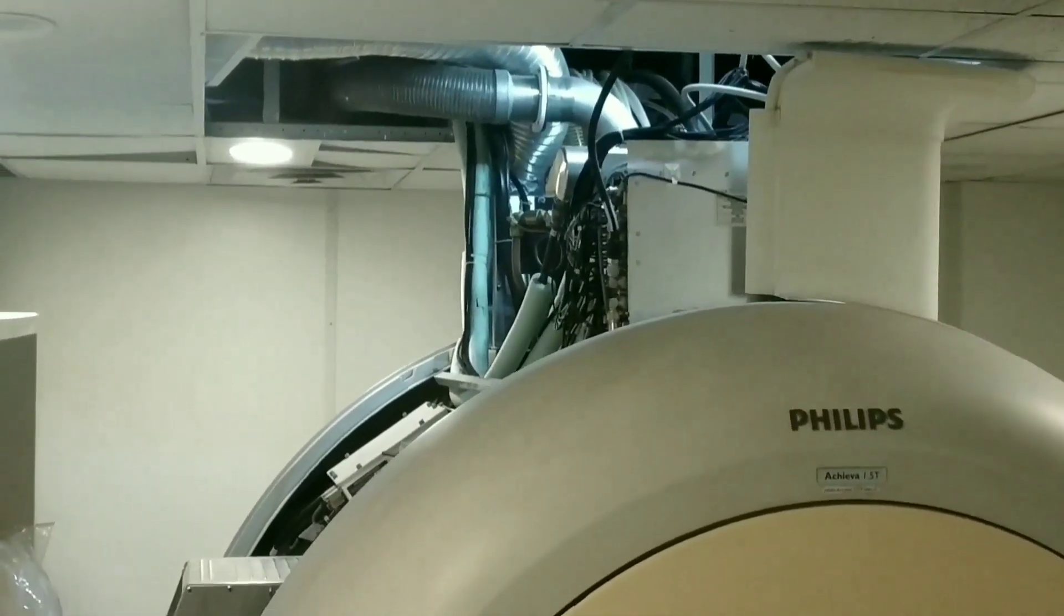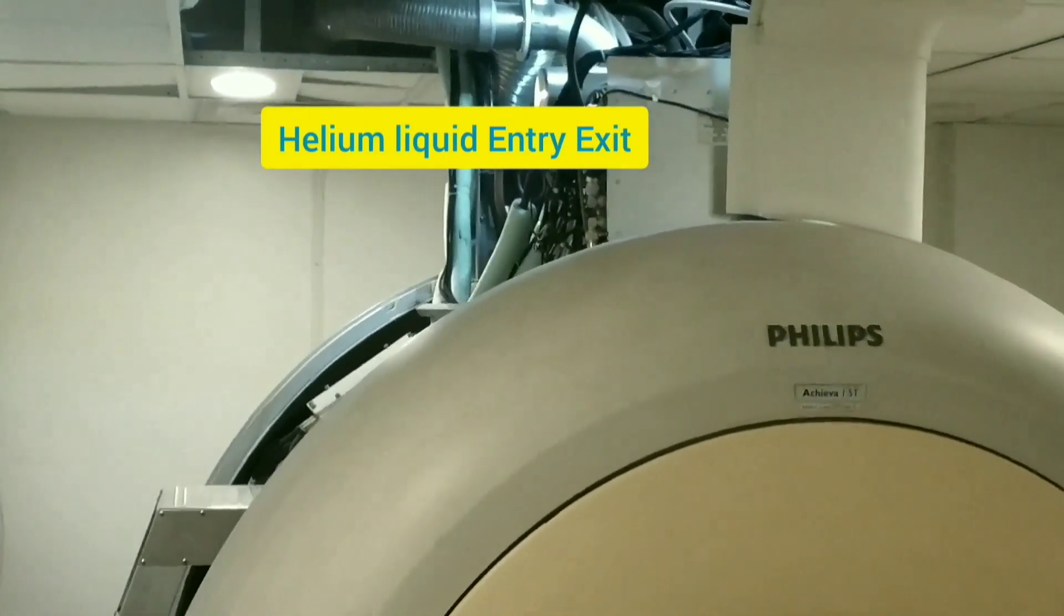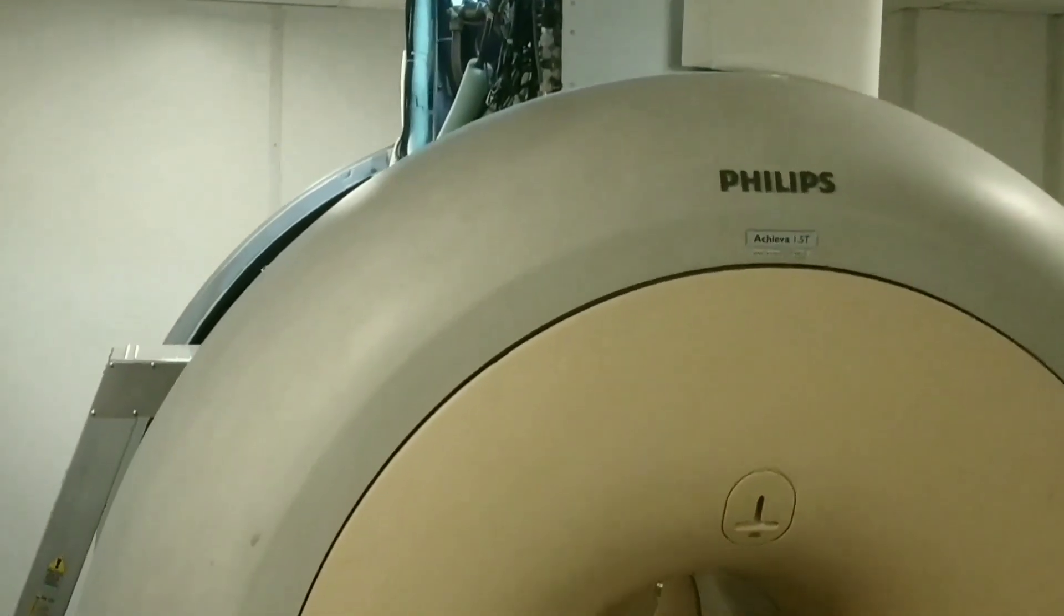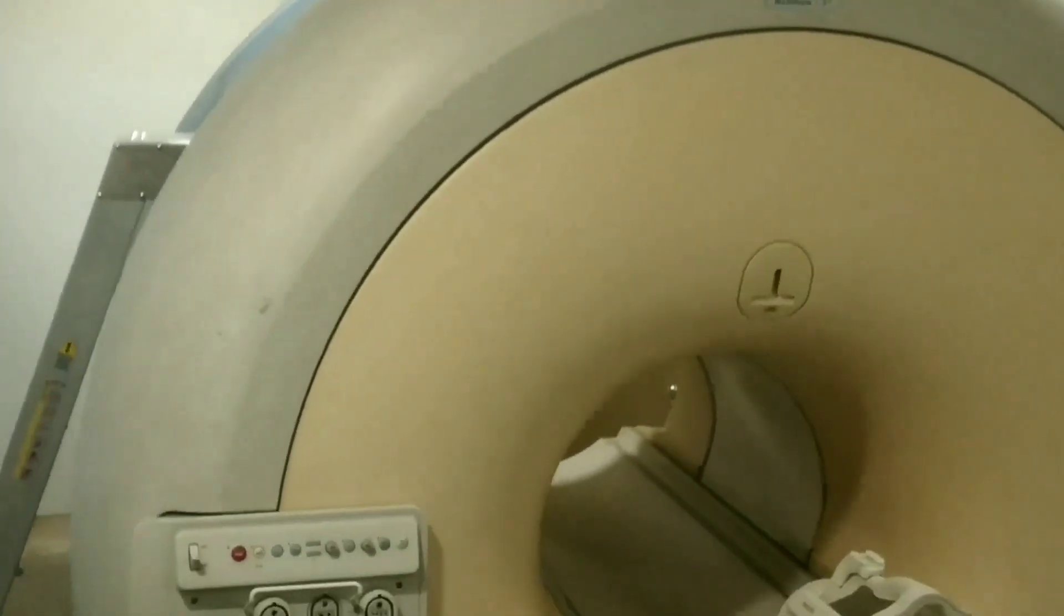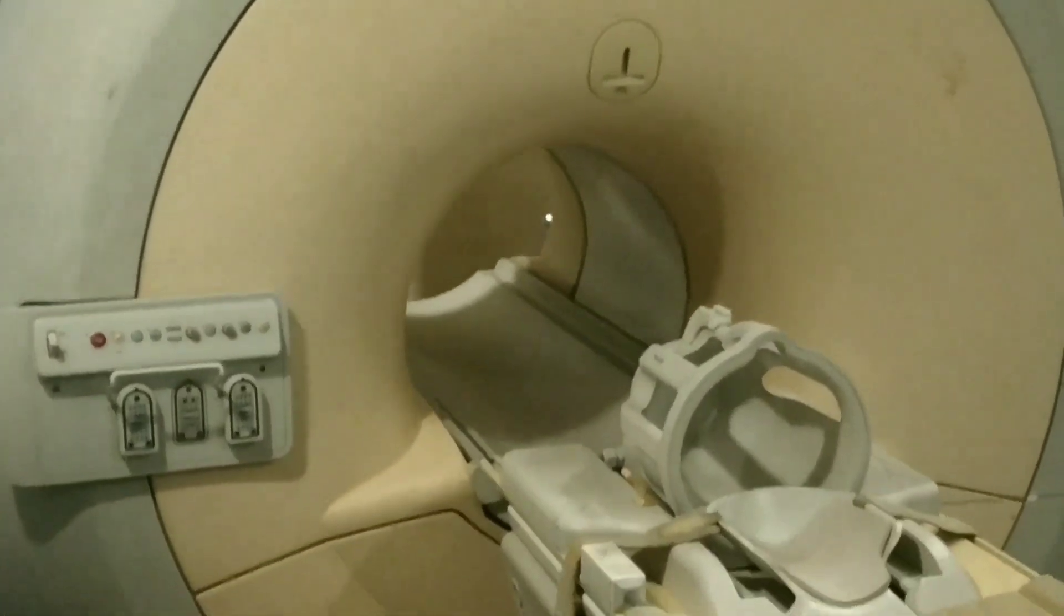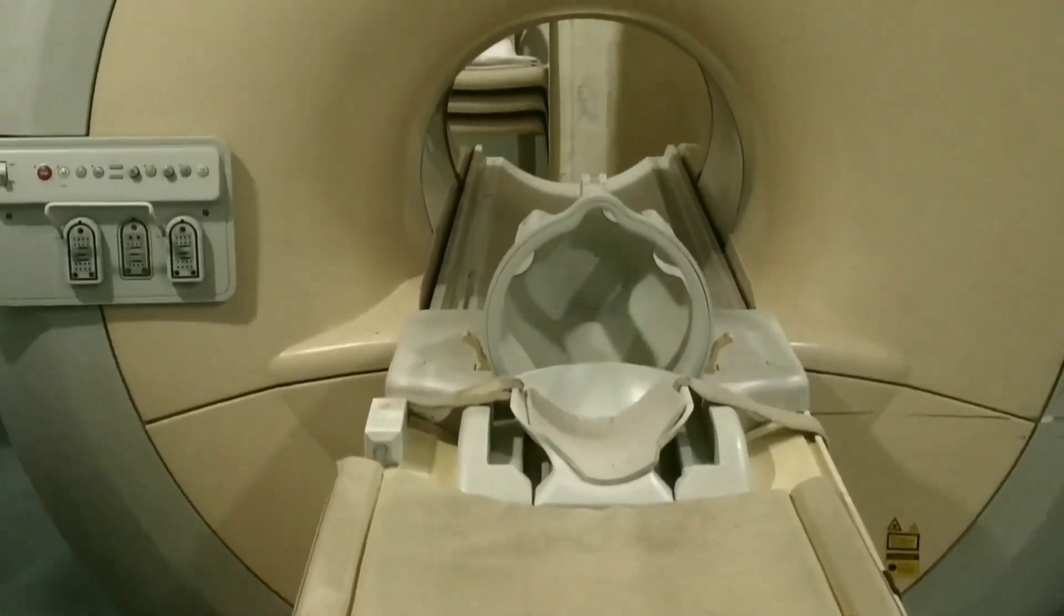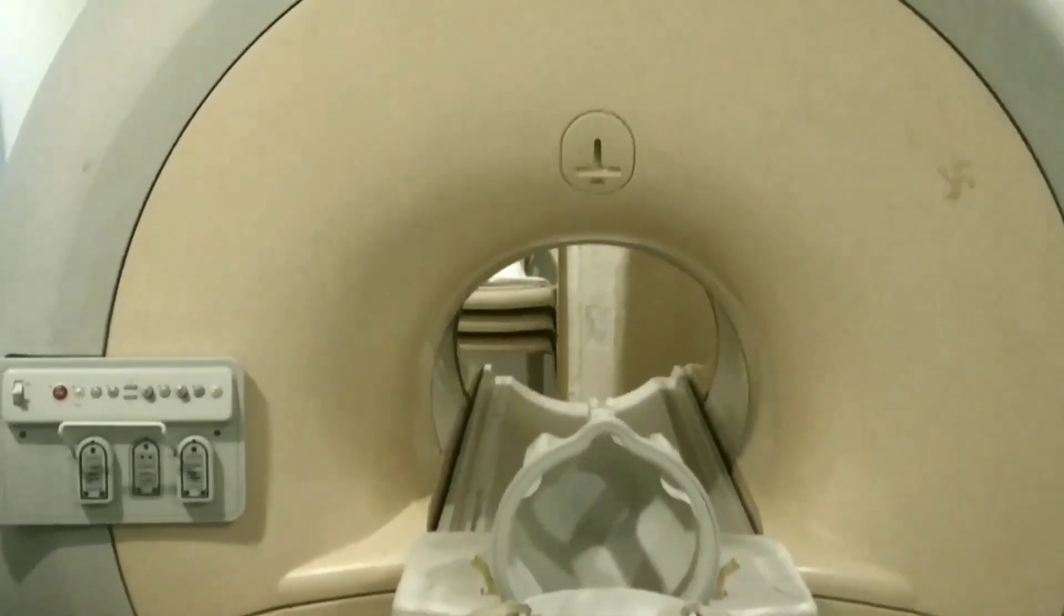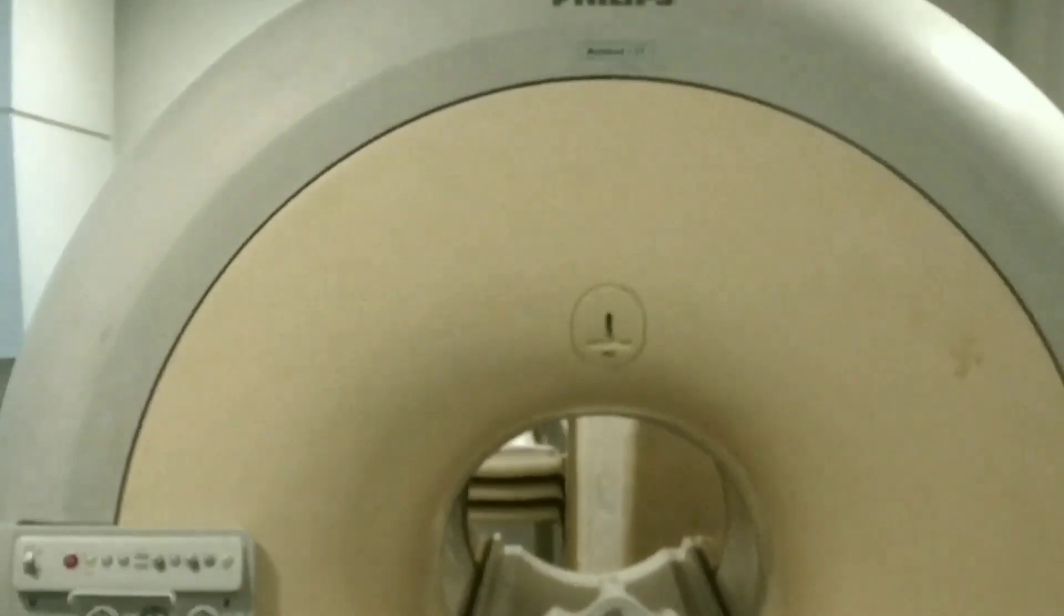Over here is a liquid helium tank. This is used for maintaining the superconductivity. The MRI uses the fact that the body has abundant amounts of hydrogen protons, and with the change in magnetization, the behavior of the proton changes.